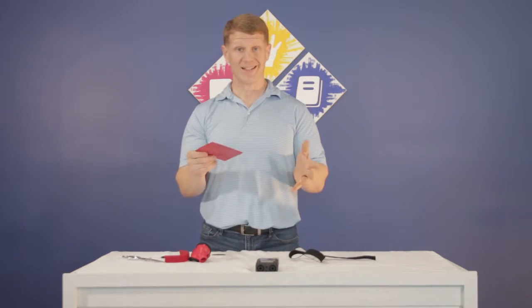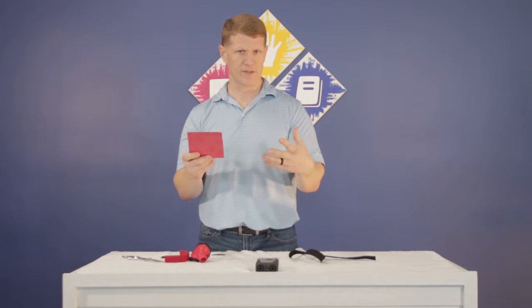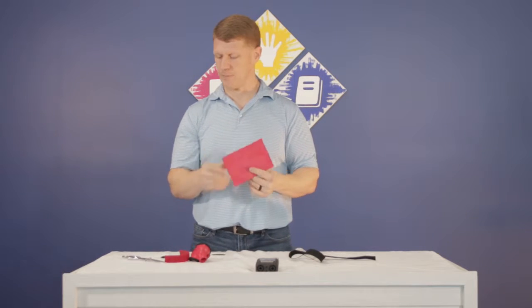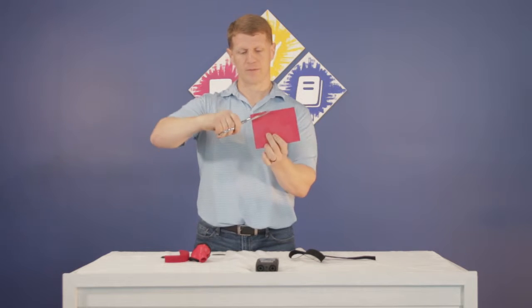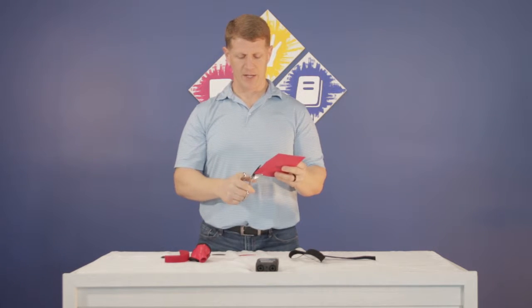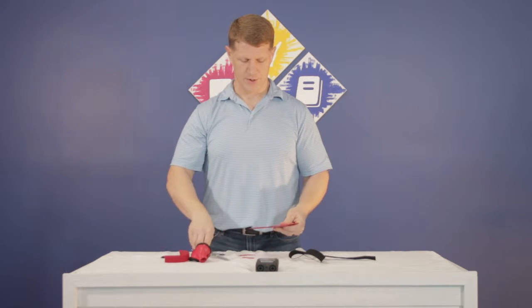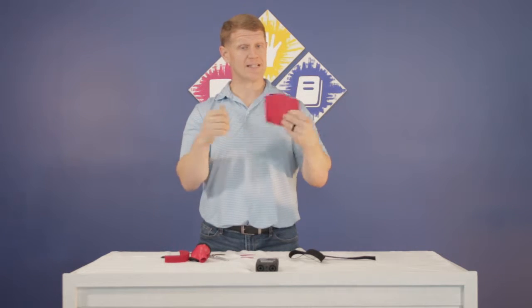The piece only has to be roughly the length from the IP joint just past the CMC — it doesn't have to be specifically measured, just roughly that shape. The more you do it, the more comfortable you'll get. I'm going to make two cuts: a diagonal cut — roughly about a third of the width of that piece — and then a little notch out of the other side, also roughly about a third. It doesn't have to be exact because this is going to stretch and tag.